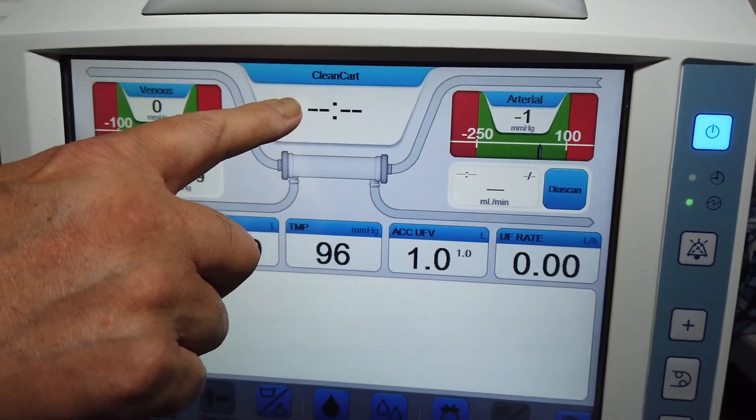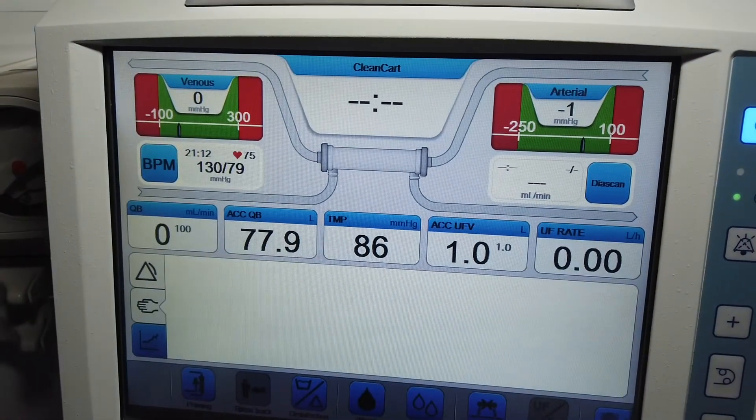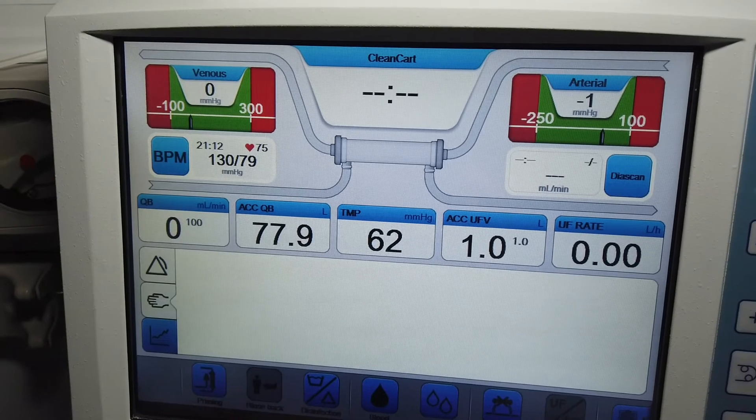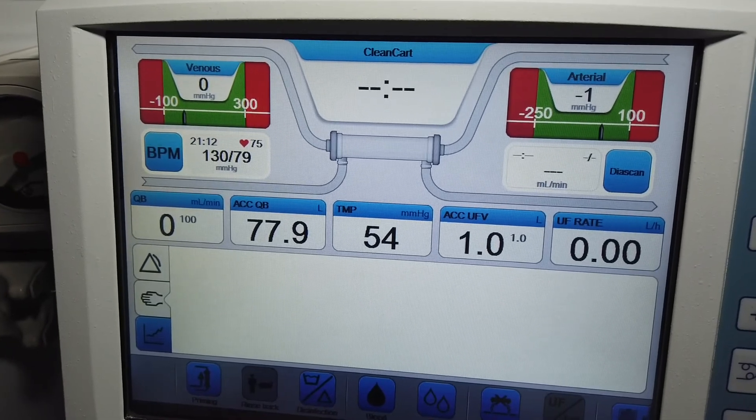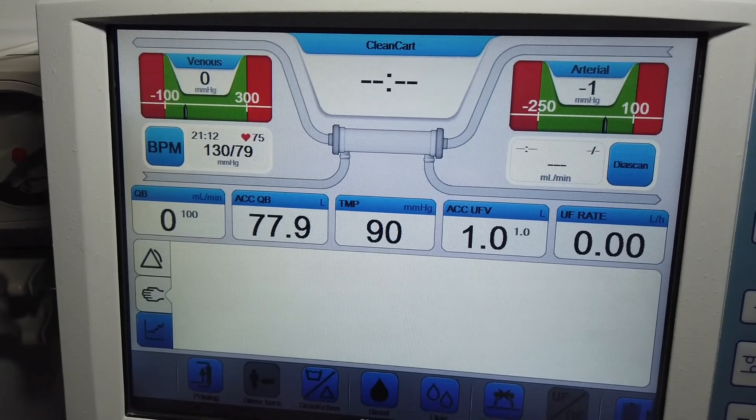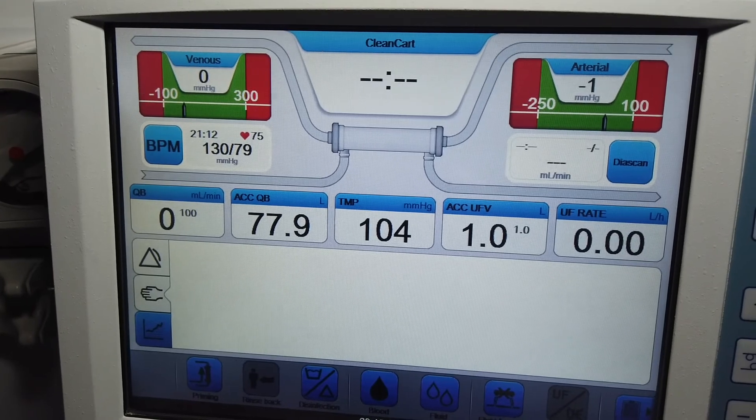Now up here, you'll see it's clean cart. That means the machine is starting to get ready to accept the clean cart that I put in, which is a C. So I have to wait.